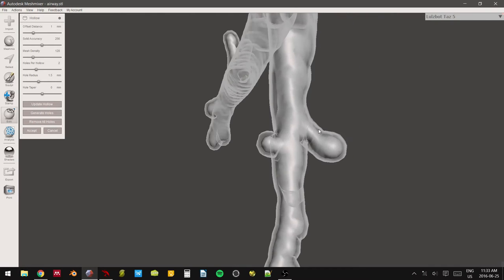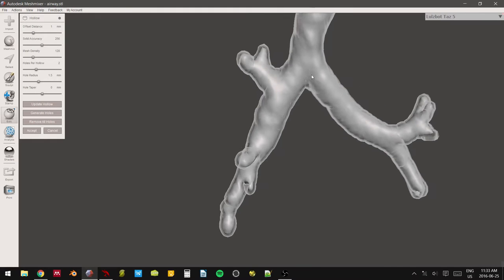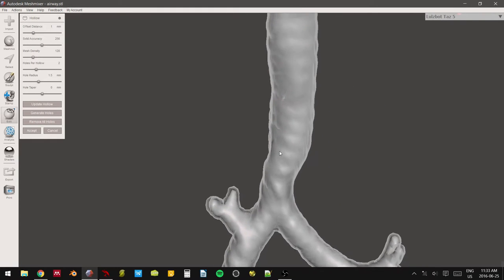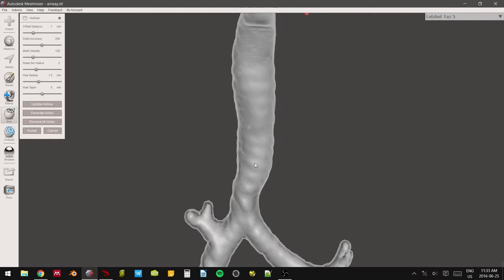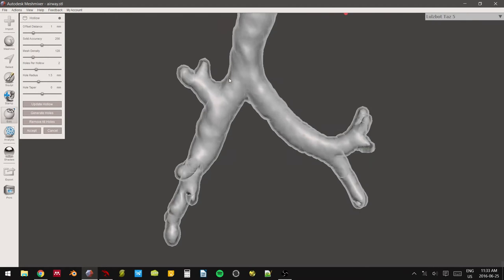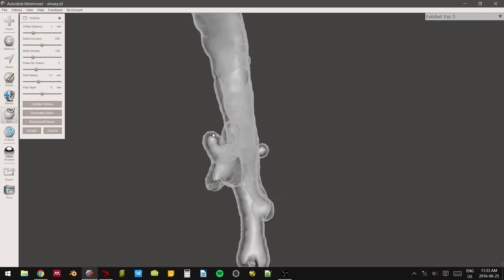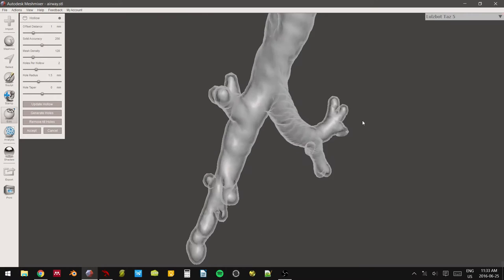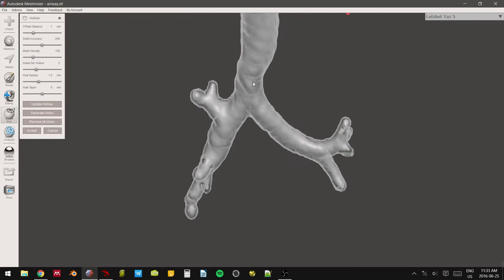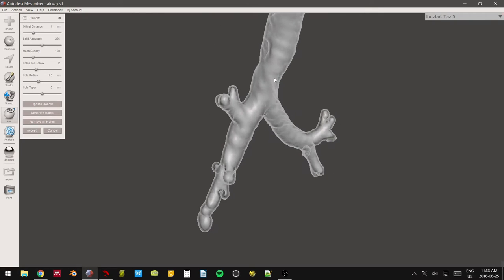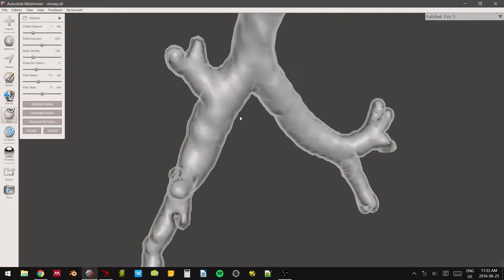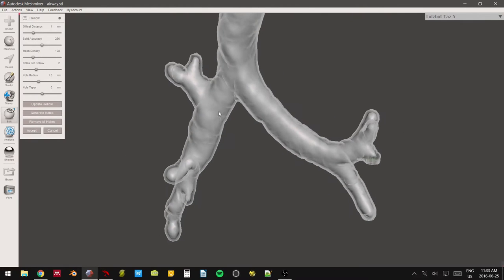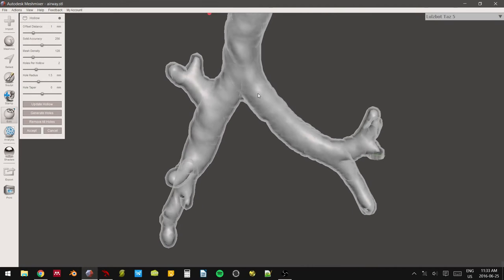The problem with this is that suddenly you're not really taking out the data that you pulled out of from the original CT. Now when you're just teaching these techniques, it might be totally okay to have a little bit of estimated play in the models that you produce for ease of both printing and model creation. But if you're doing something for like pre-surgical planning or in-surgical planning, you want to be as true and as accurate to the patient's CT and source data as possible.